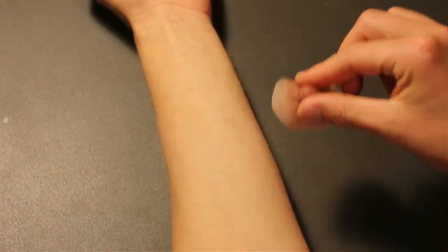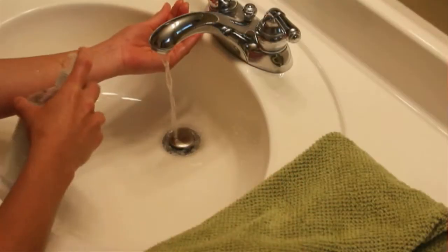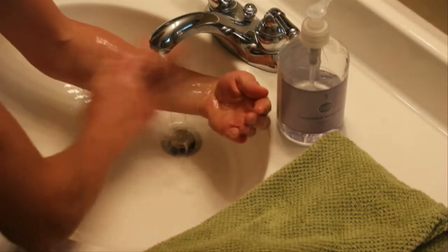Practice positioning the prosthesis without adhesive to ensure accurate placement. Wash and thoroughly dry your skin. Oil and lotion should be removed for maximum adhesion.